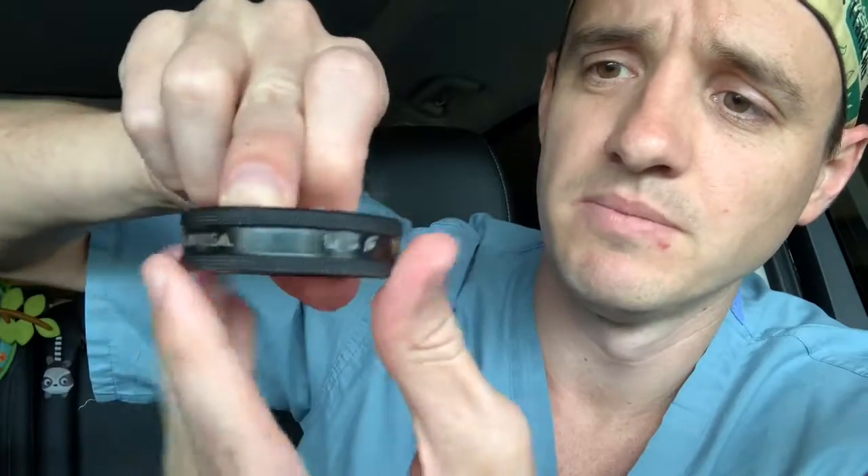It'll sit flat. So the next step is that you just take your ring with the notch up and sort of drop it into place and put tension on both sides of the ring. If you just push down on one side and start to screw, this other side will pop up and it won't really catch the threads correctly. So I just sort of do this with my fingers and spin it into place. It takes a few turns. Then once you catch the threads, you can try to do it with one finger. Nice and secure in there, not making any noise.